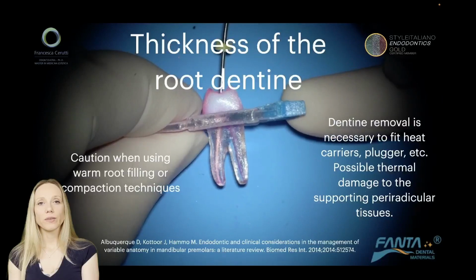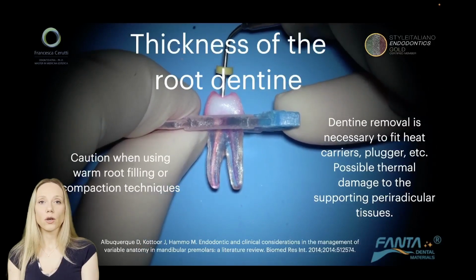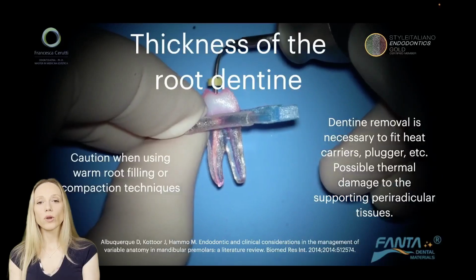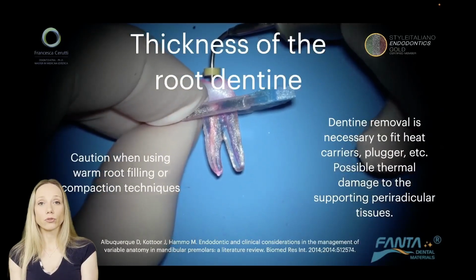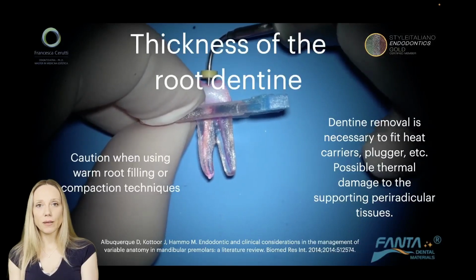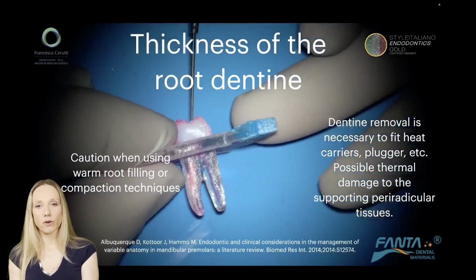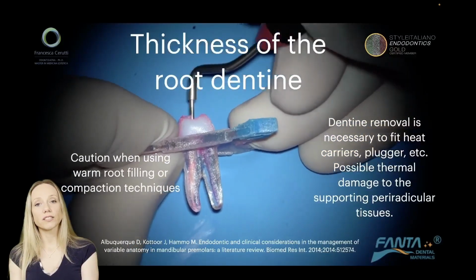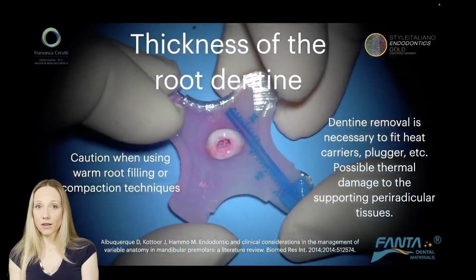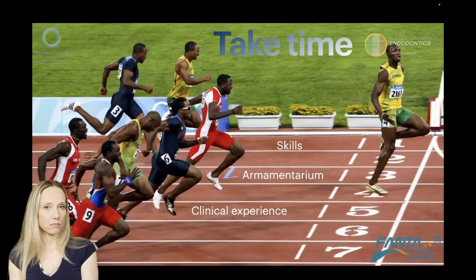In the same way, we have to be extremely careful when we choose our obturation technique if we have thin root walls, because when we use warm gutta-percha compaction techniques, or warm techniques in general, we have to remove some dentine in order to make room to fit our heat carrier, the pluggers, the backfilling device, etc. So maybe in some cases it's preferable to use cold techniques like single cone bioceramics or lateral compaction, because we are stressing the tooth less, and also because if we apply too much heat, if the dentine is thin, we can cause damage to the supporting periradicular tissues. So let's pay attention to this.